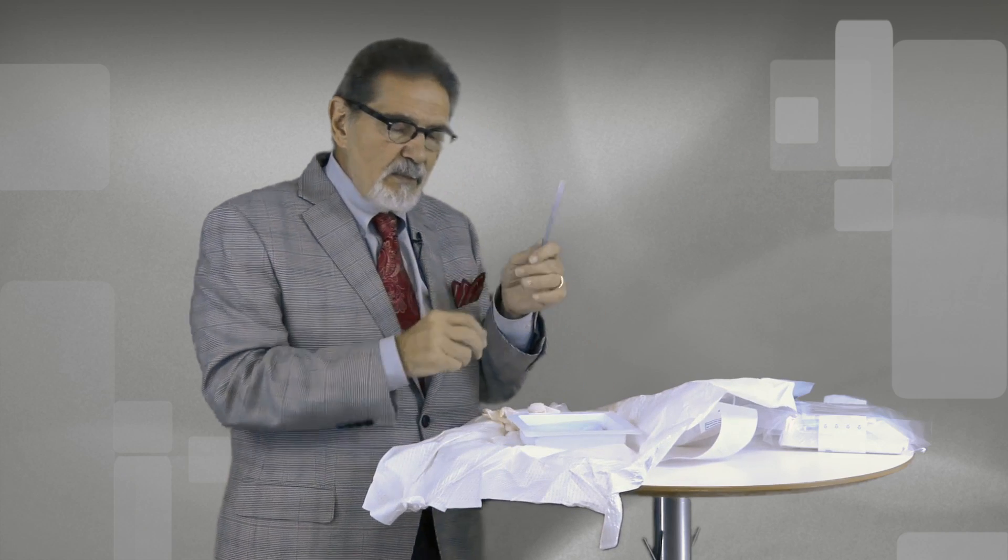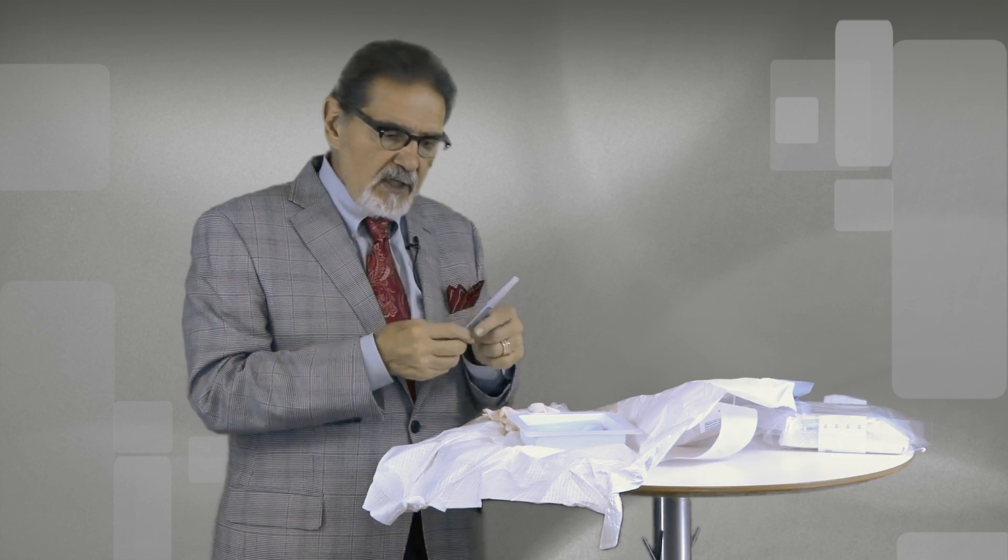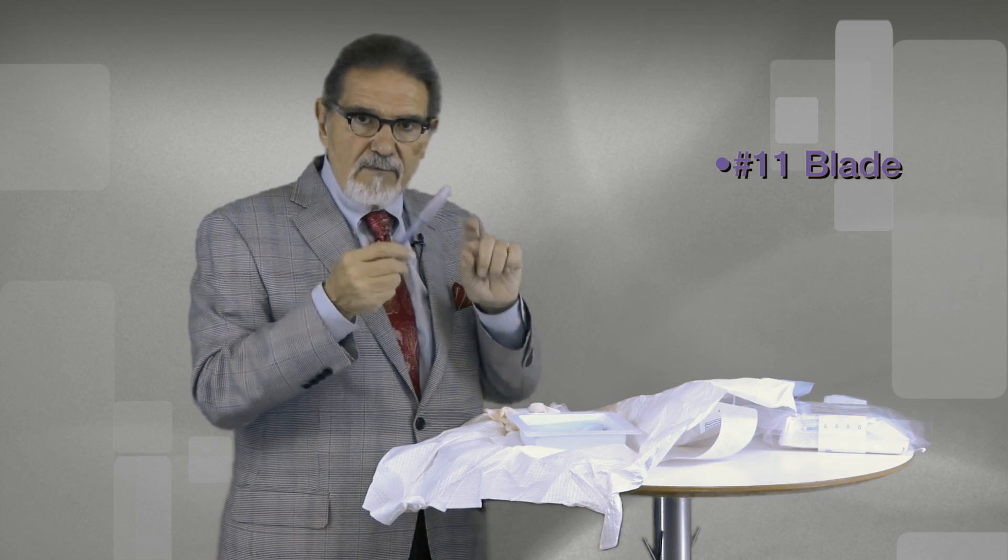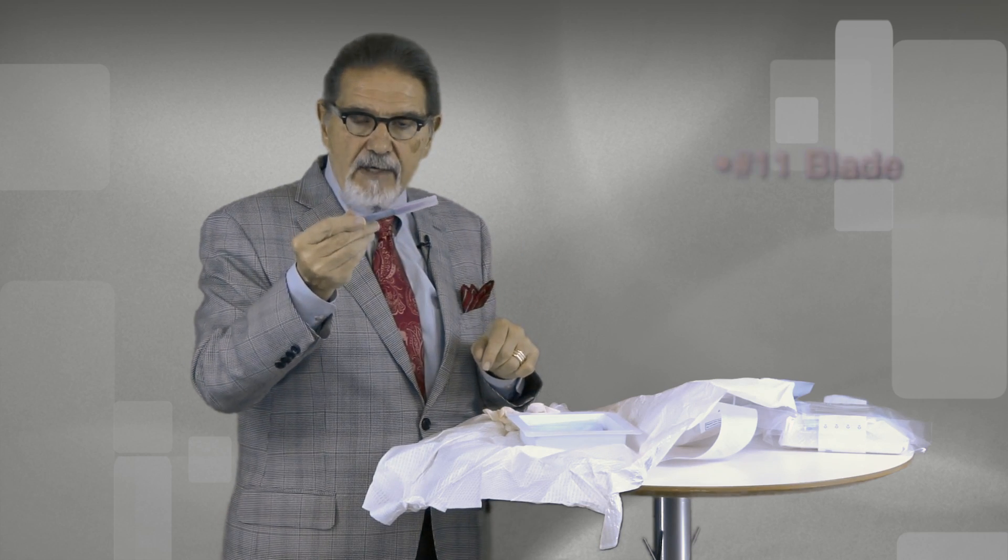Once again, to be able to make the small little aperture in the skin, you need a number 11 blade with a handle which we supply.